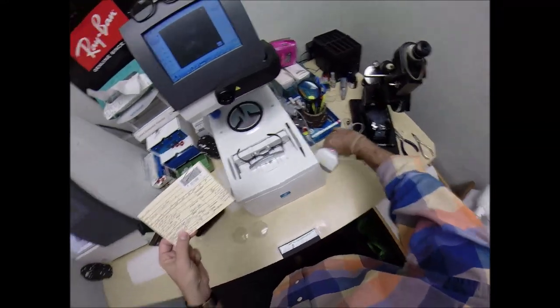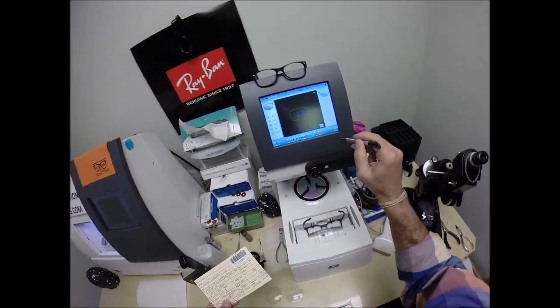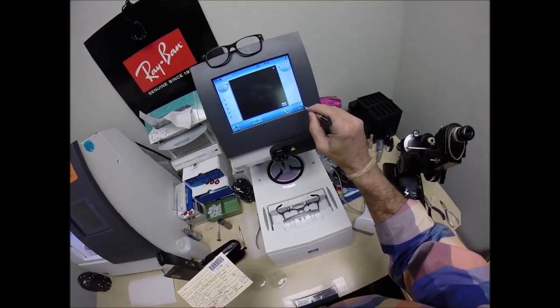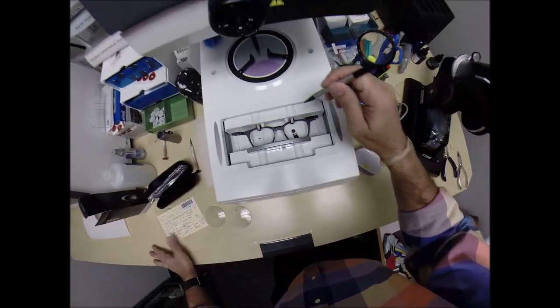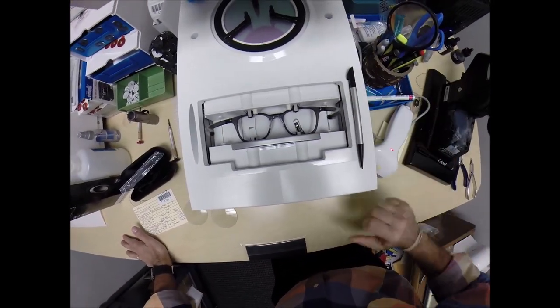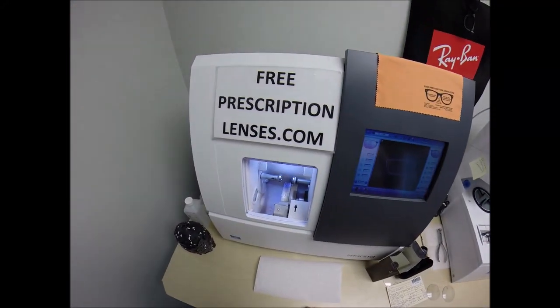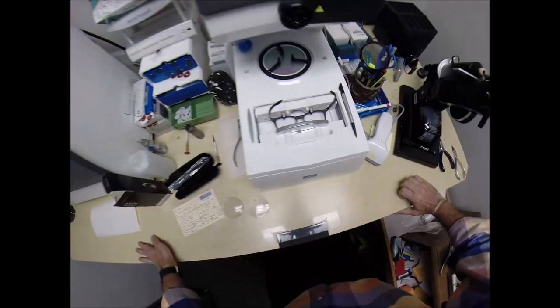All right, let me begin. Oh, let me barcode that in there. Secret agent 1166. And I'm going to hit this little circle. A little stylus. The clamps are going to hold that in place. And the stylus is going to come up and go around and trace the inside bevel of the right side of the frame before doing the same thing on the left.